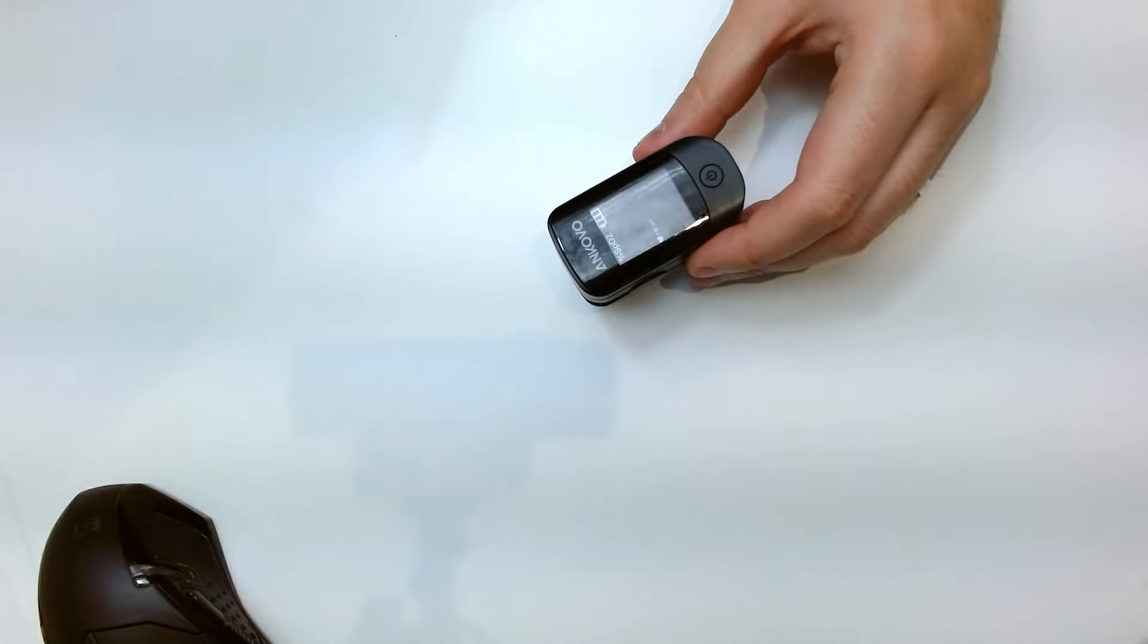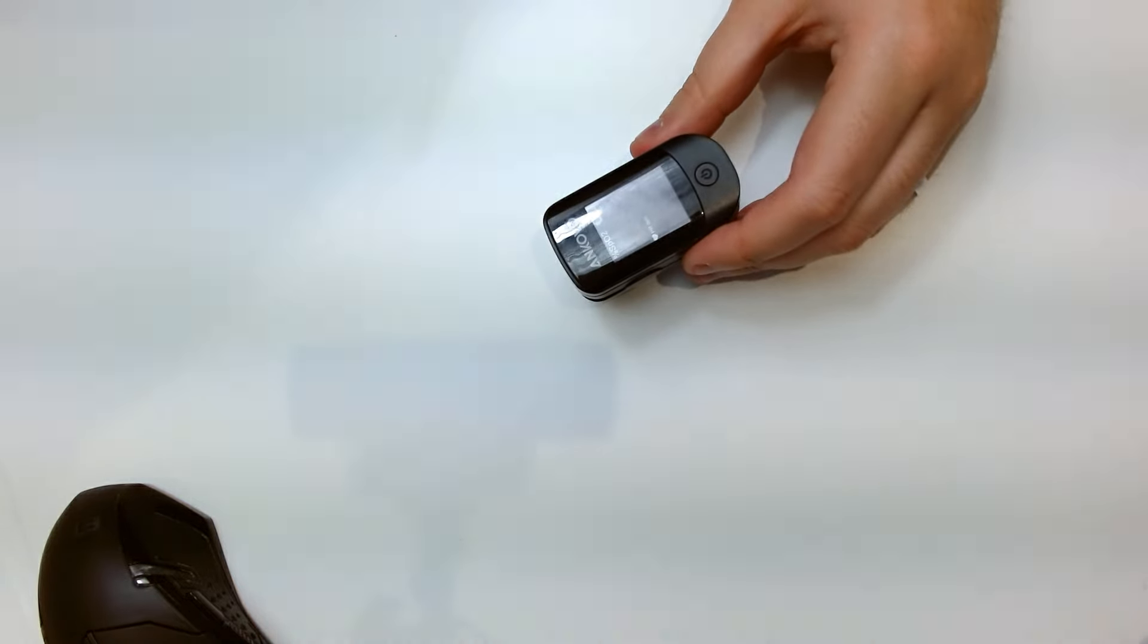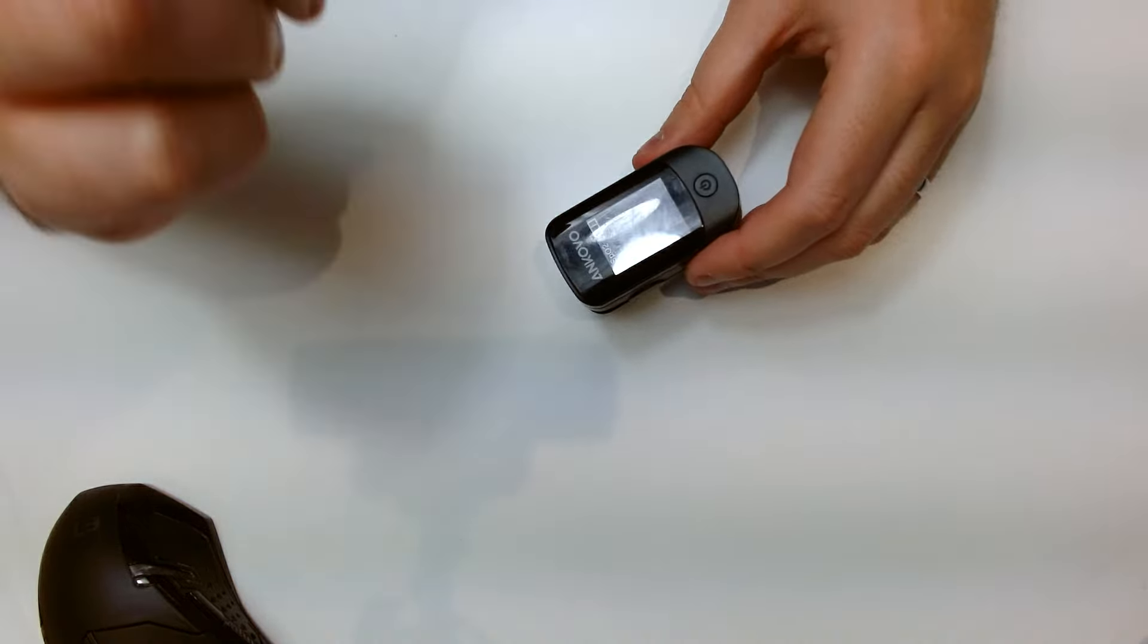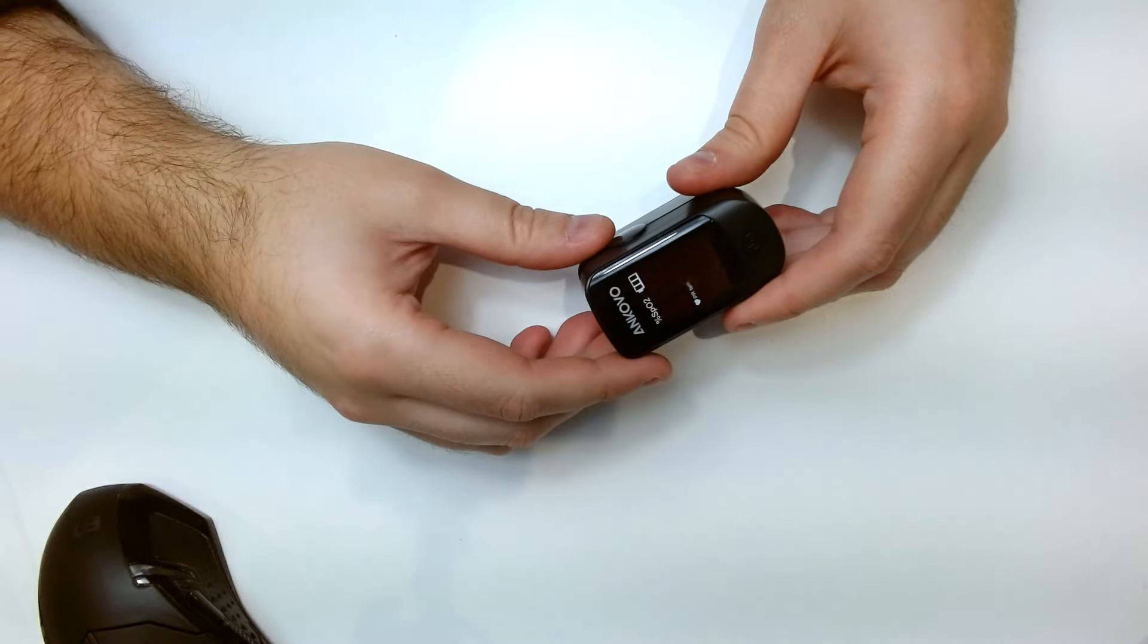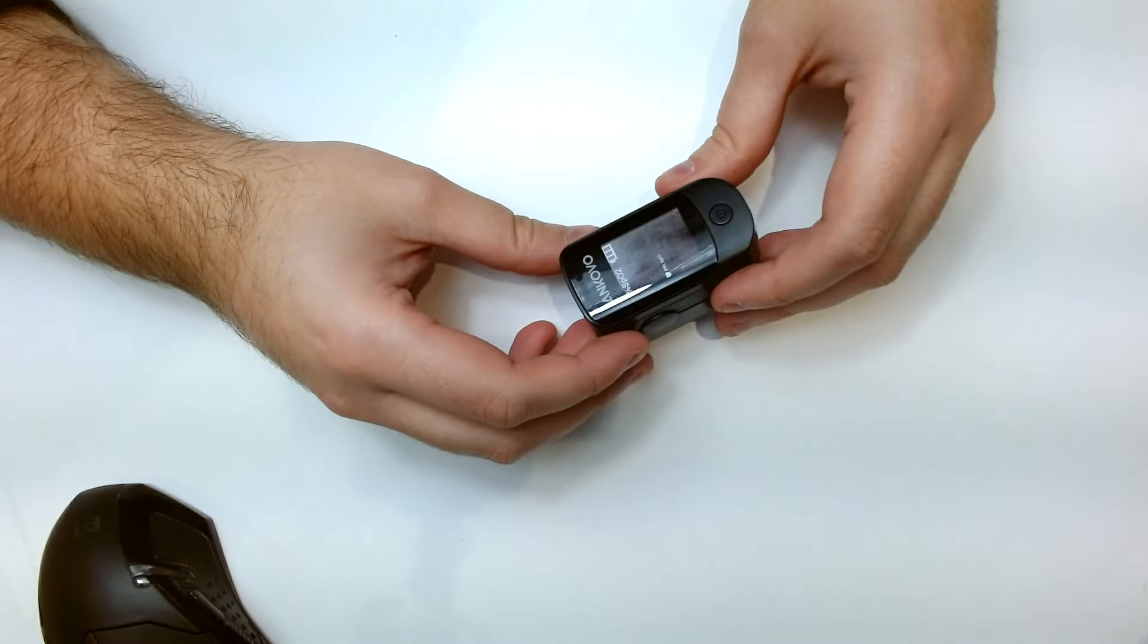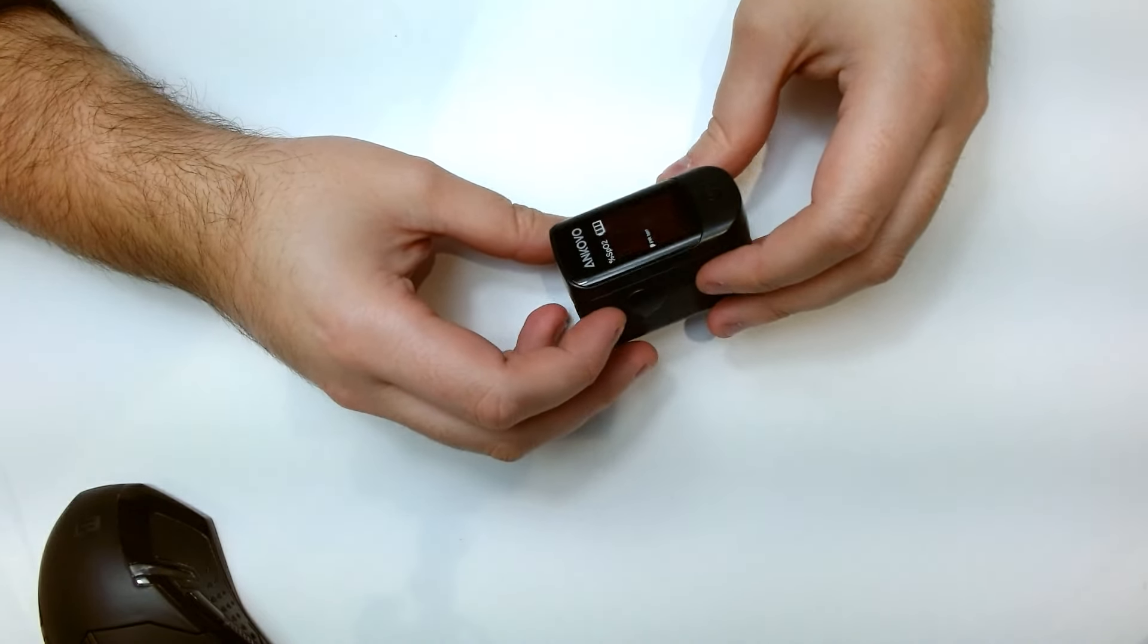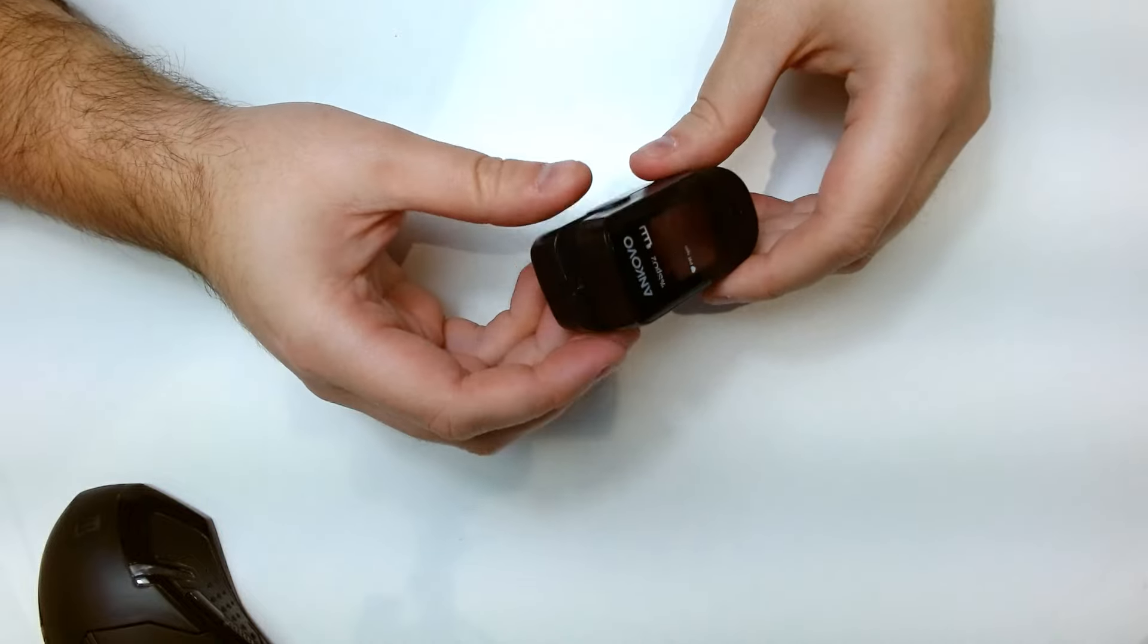It's a really nifty little gadget to use when you need it. So let me show you how it all works.